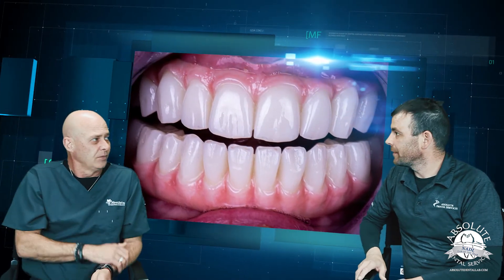That's exactly what it is. You're looking at about 70% glass, 30% composite. The aesthetics are world class. Because it's one piece in the way that it's designed in the CAD-CAM system, you don't have to worry about it fracturing.